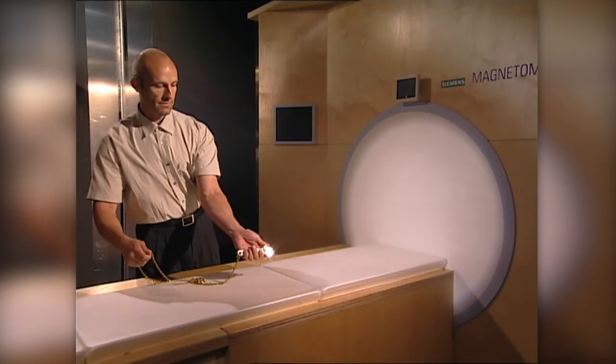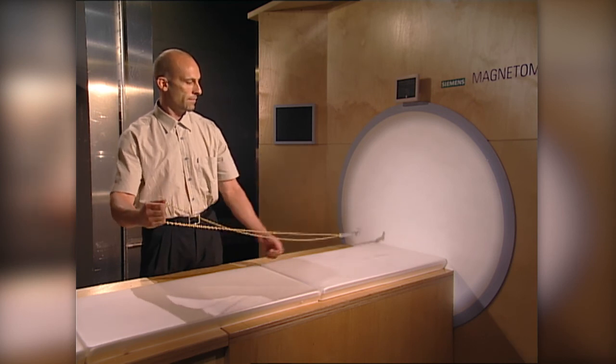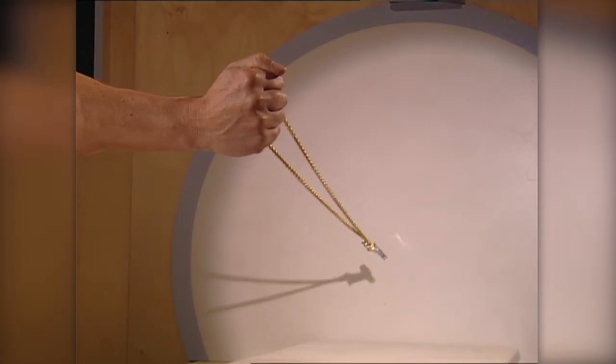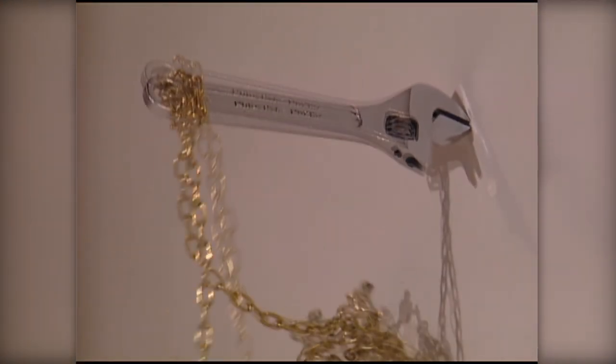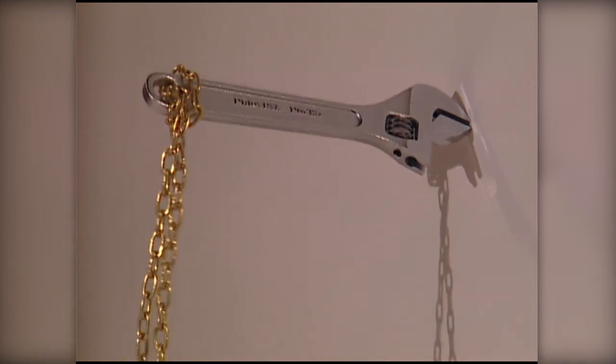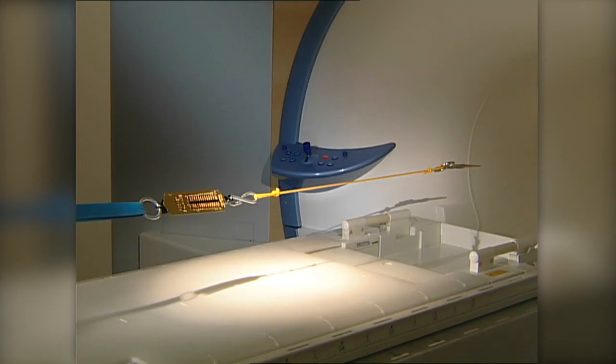The force exerted by an MR magnet on a magnetizable object depends on the degree to which the magnetic field changes spatially. This spatial change can be quite abrupt for shielded high-field magnets. The attractive force is powerful and arises suddenly. A metal chain is clamped to this cord. As the person approaches the system, the adjustable wrench becomes horizontal.